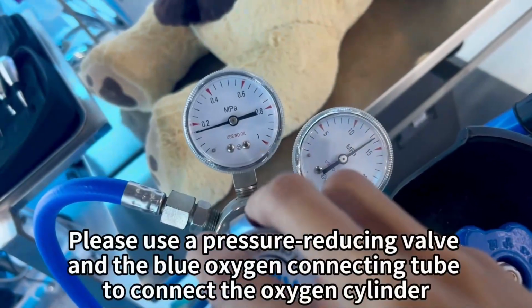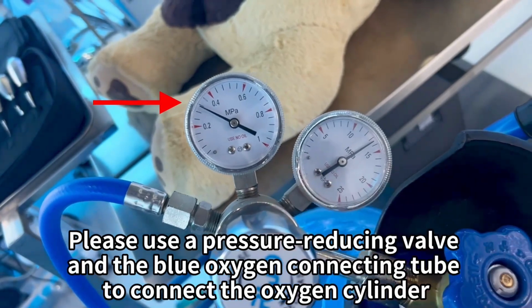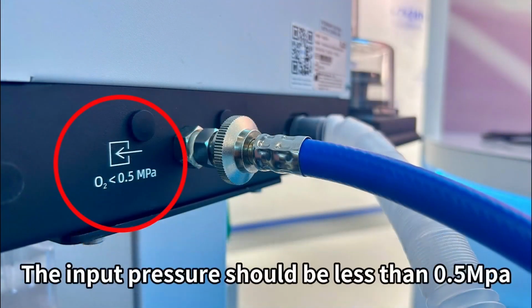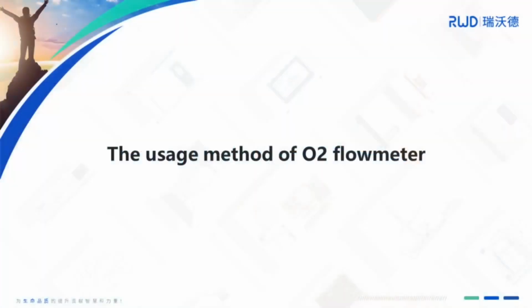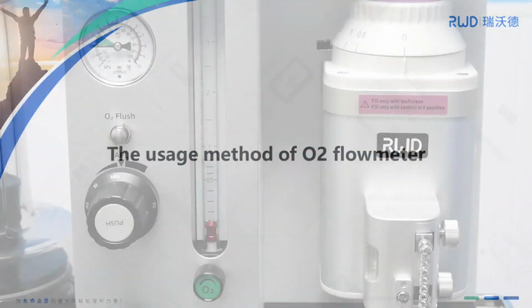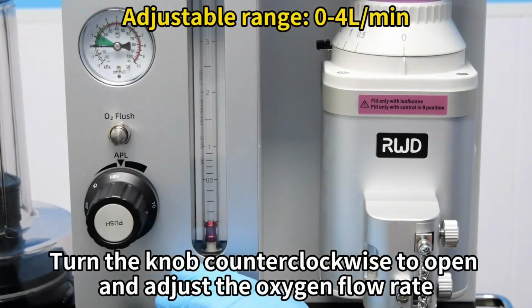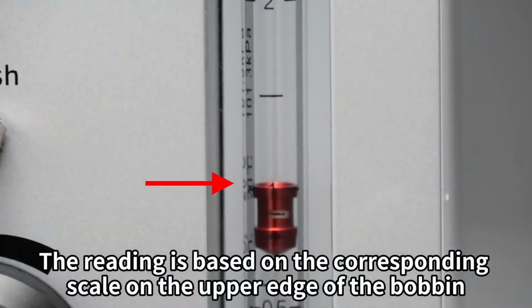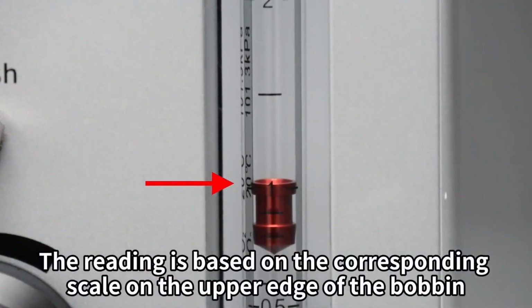Please use a pressure-reducing valve and the blue oxygen connecting tube to connect the oxygen cylinder. The input pressure should be less than 0.5 megapascal. The usage method of oxygen flowmeter. Turn the knob counterclockwise to open and adjust the oxygen flow rate. The reading is based on the corresponding scale on the upper edge of the bobbin.